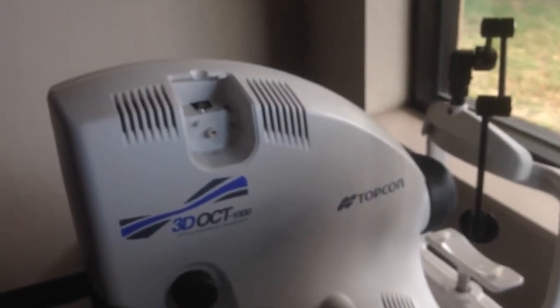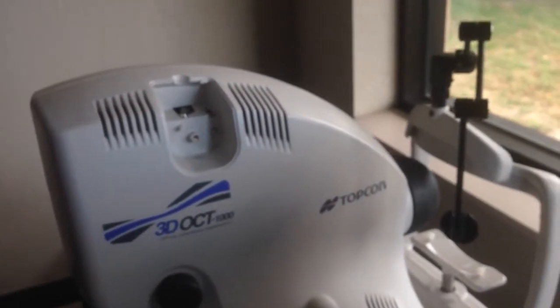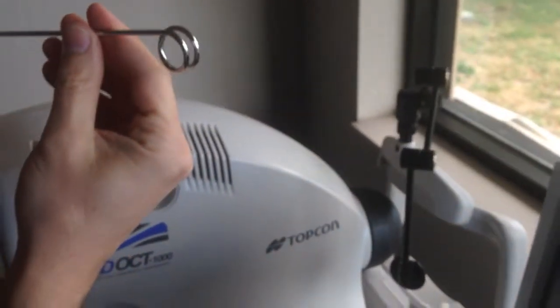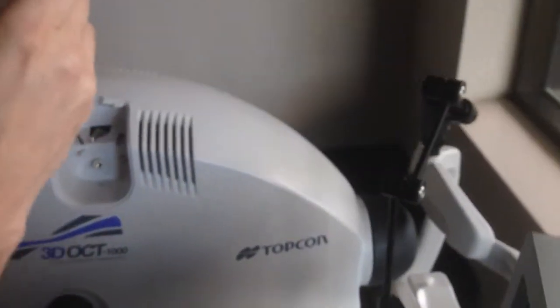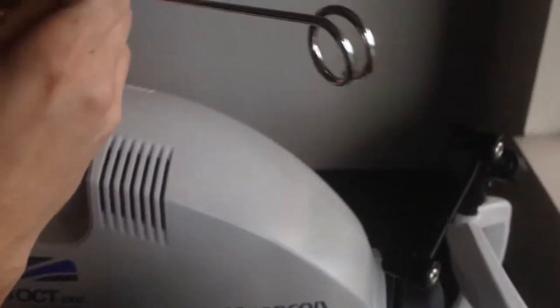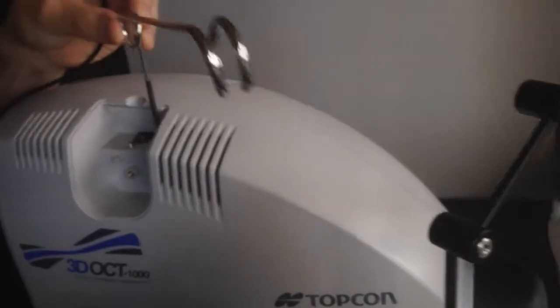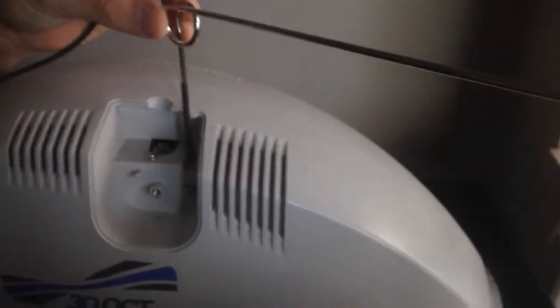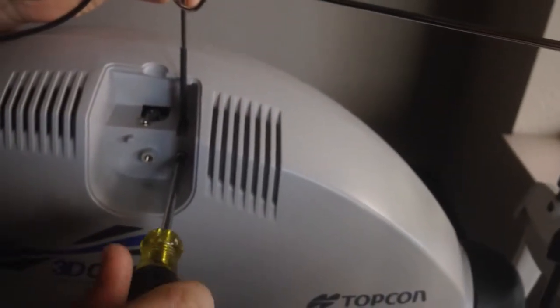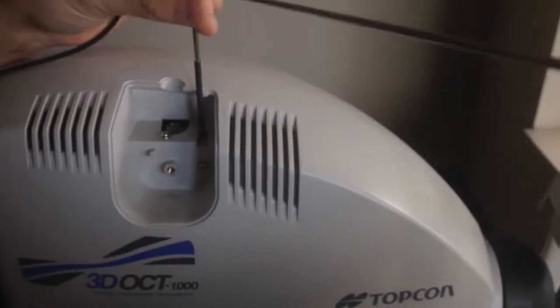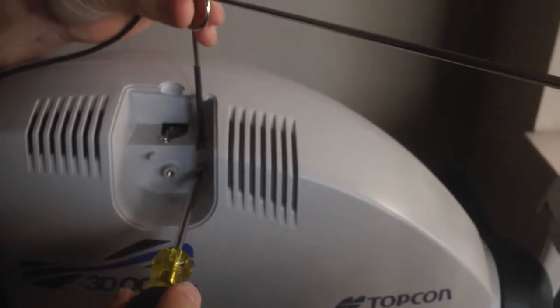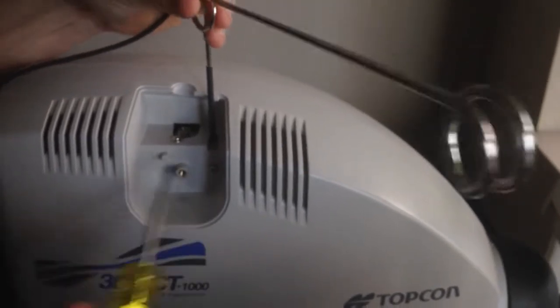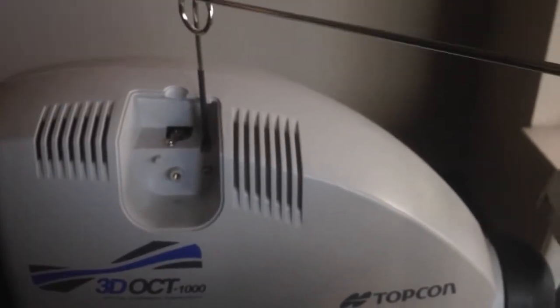Show that plate off. There's another little metal rod guide. It goes right down in here. I'm just going to tighten the screw on the bottom, hold it in place. Not too tight so you can still spin it around, but just enough so it won't come out.